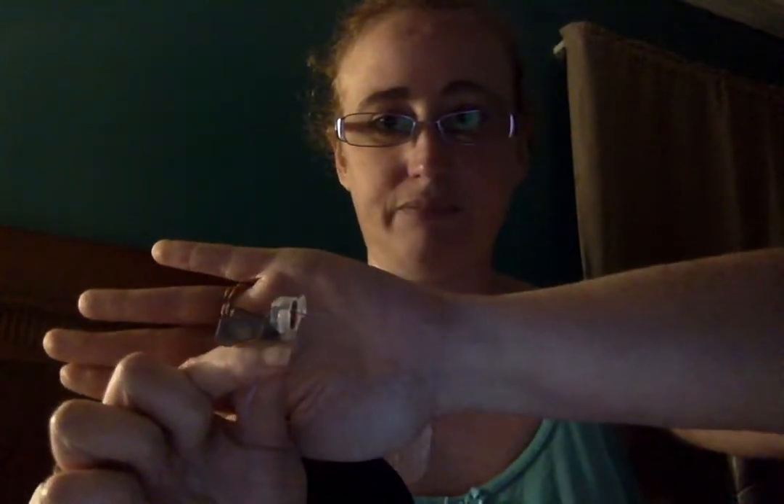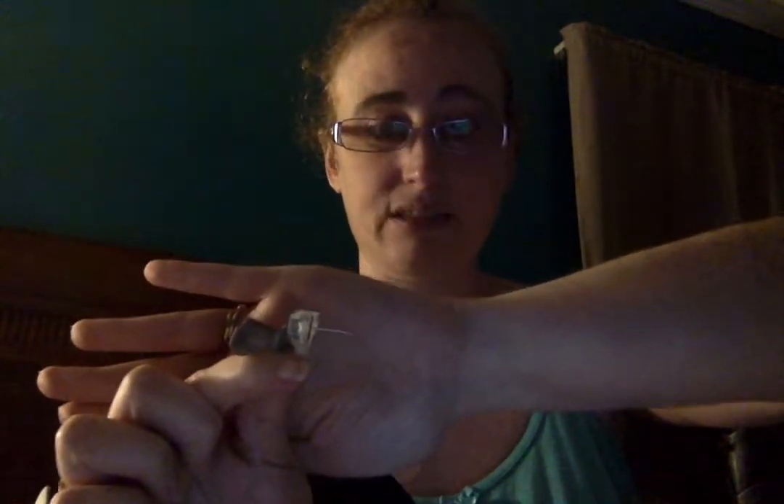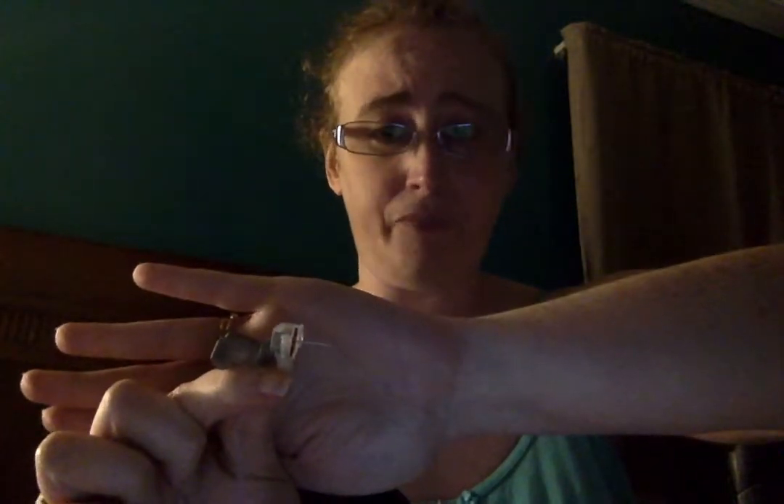There are several ways to get the bio patch behind the needle. The first thing we're going to do is remove the protective cover from the needle. This is a 0.75 needle — let me get my hand behind here so you guys can see it. They're that short. For normal adults, 0.75 is usually too short. We learned that the hard way with me and with several patients. We were never able to get the 0.75 to work.